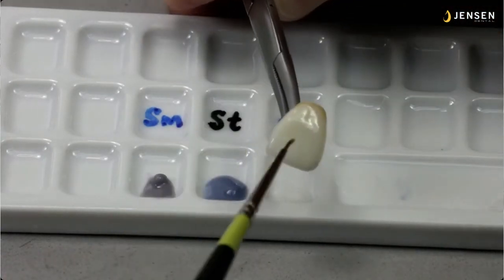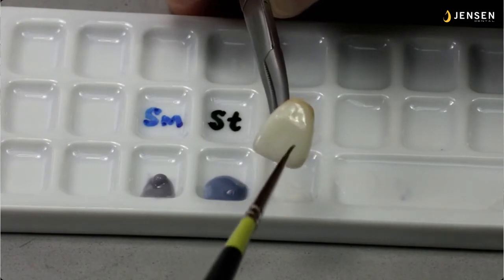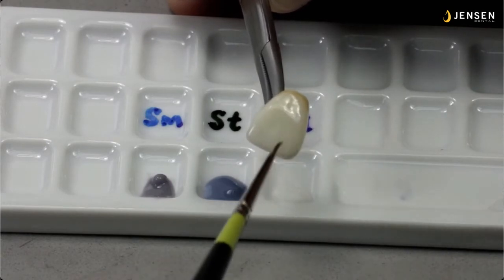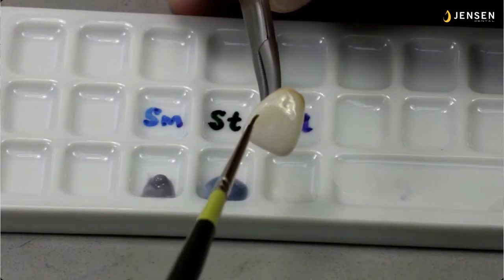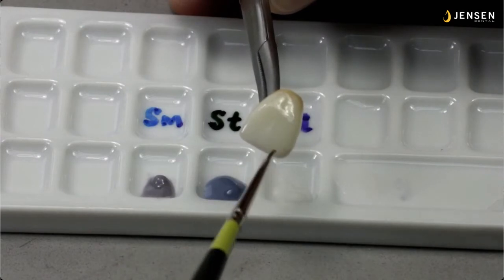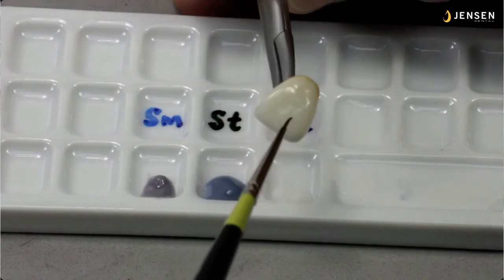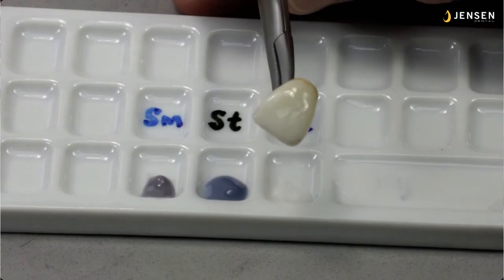So you want to glide it off, and it's thinned down so it'll slide right off the brush. And that's also why there's two things applying a little glaze liquid to the brush does. It displaces any inherent water that you might have that would keep this material from being WYSIWYG, or what you see is what you get, but it also acts as a separator agent and allows the material to slide off the brush. And you can see the value starting in the incisal third, starting to lower just a little bit, and it'll look a little bit deeper and translucent.